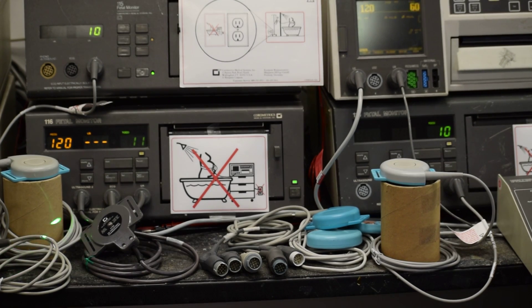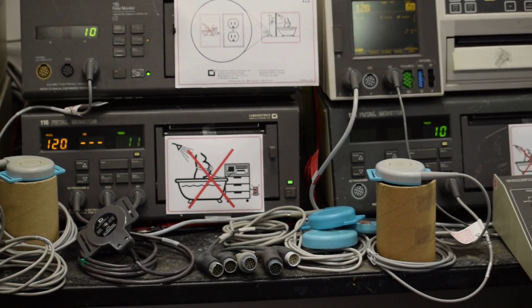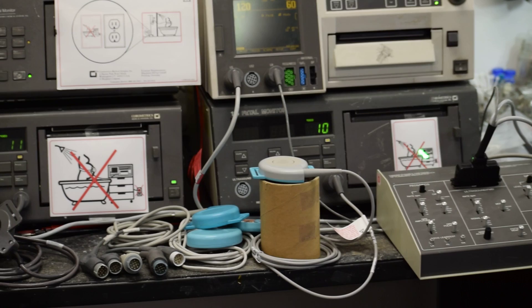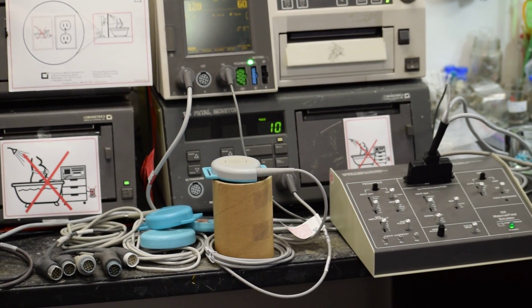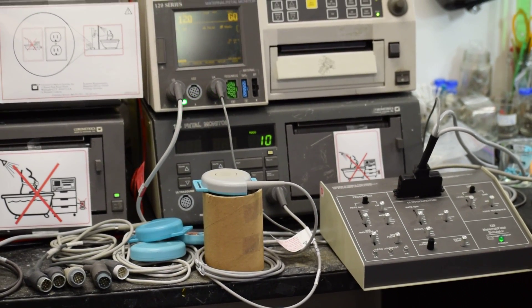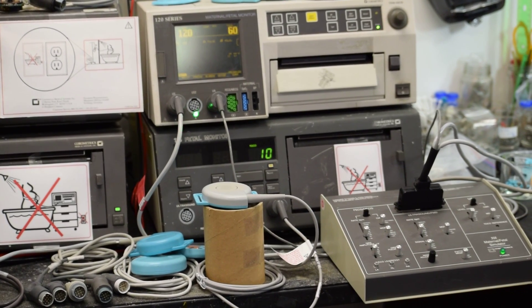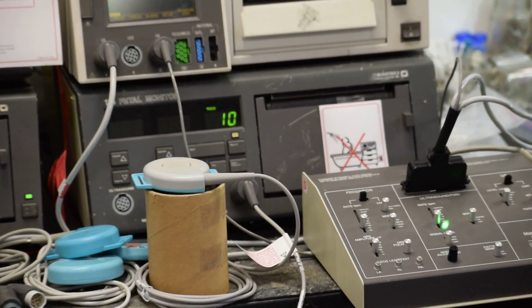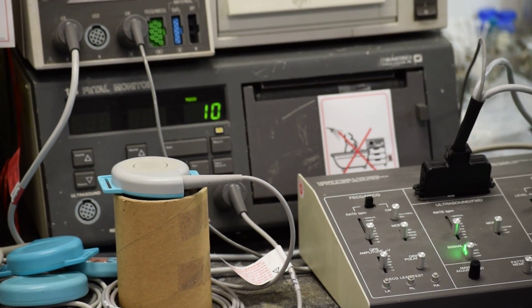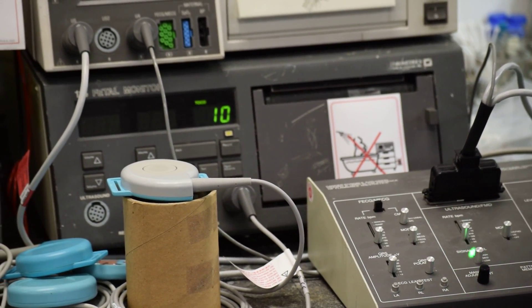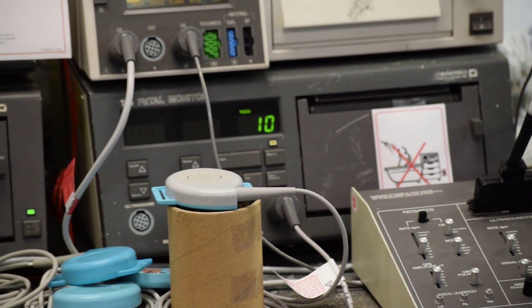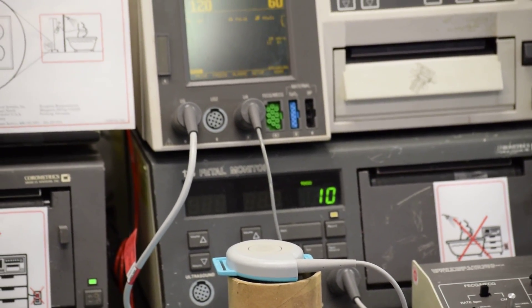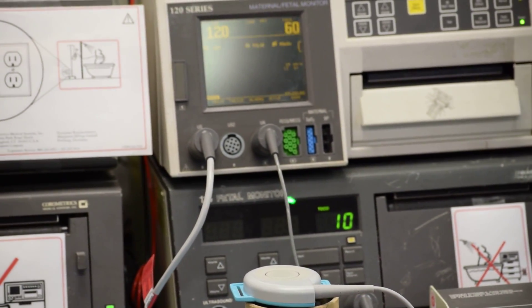This fetal simulator here is connected to the 120 series monitor for TOCO and ultrasound simulation. The ultrasound signal level on the simulator is set to the lowest, that means the fetal monitor is quite sensitive, showing 120 beats per minute.